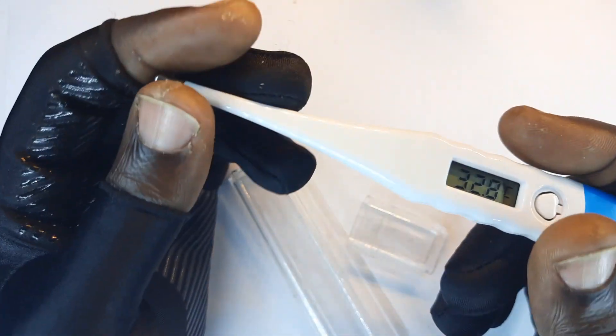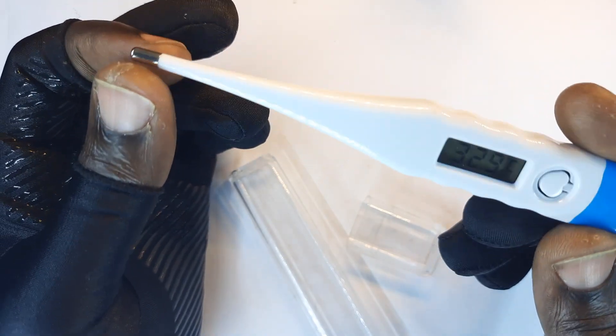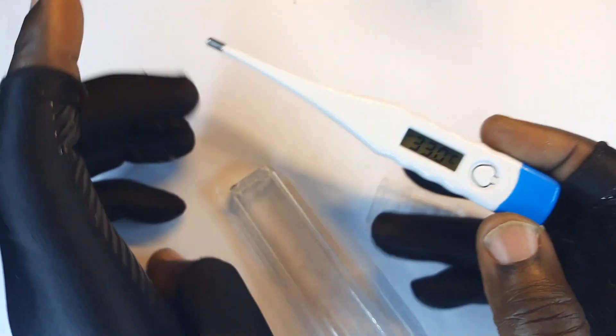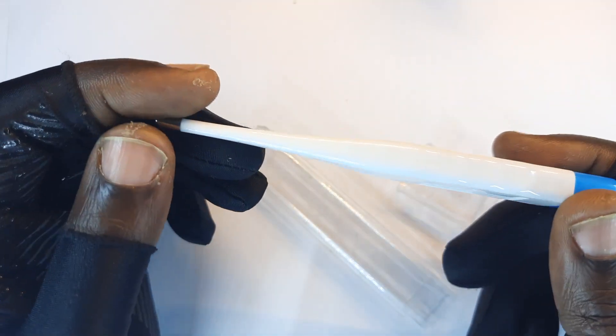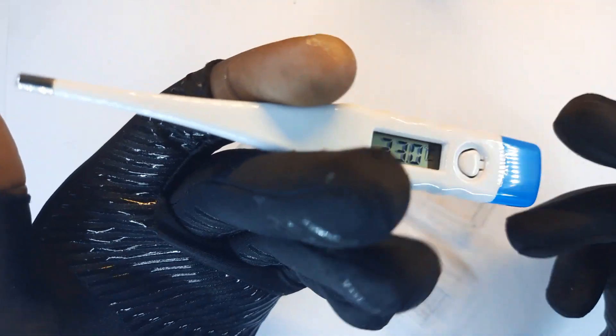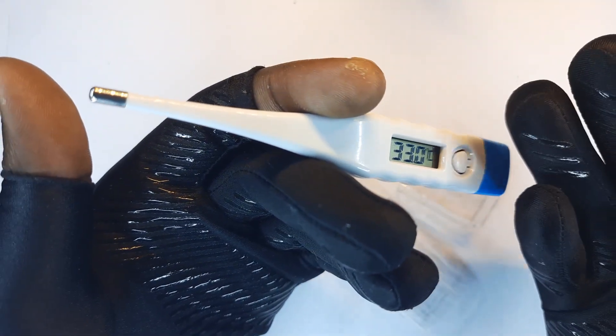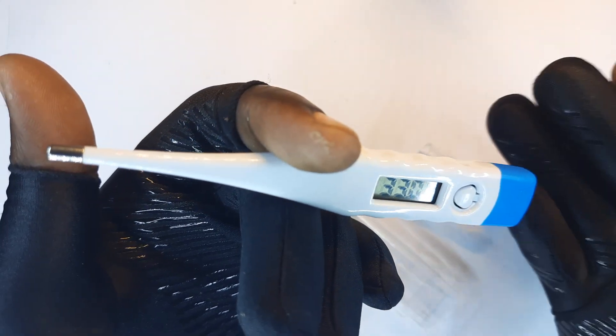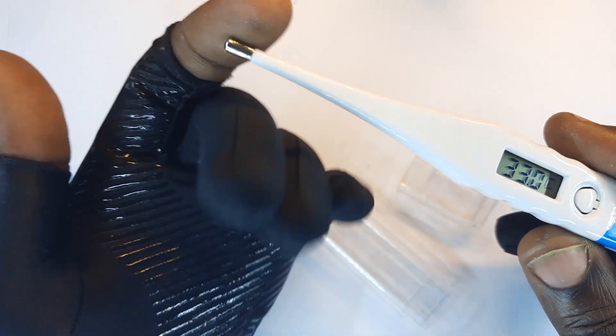And it's a very beautiful tool in most cases for checking your body temperature and fever to see if it is within the normal dimensions. And this helps you know at what point a disease is most likely at. And if it is really high, then you need to seek intervention.